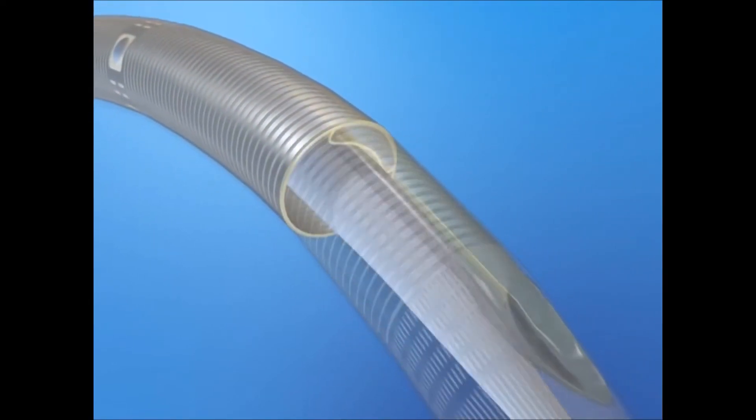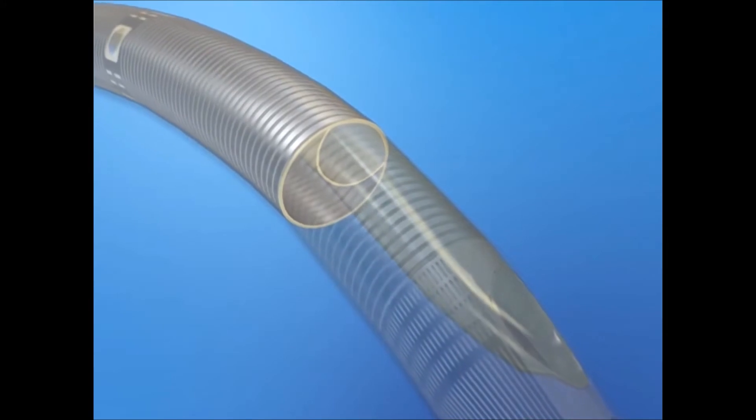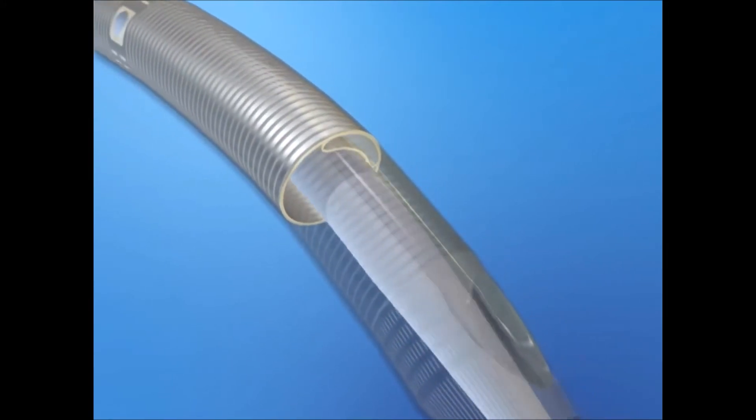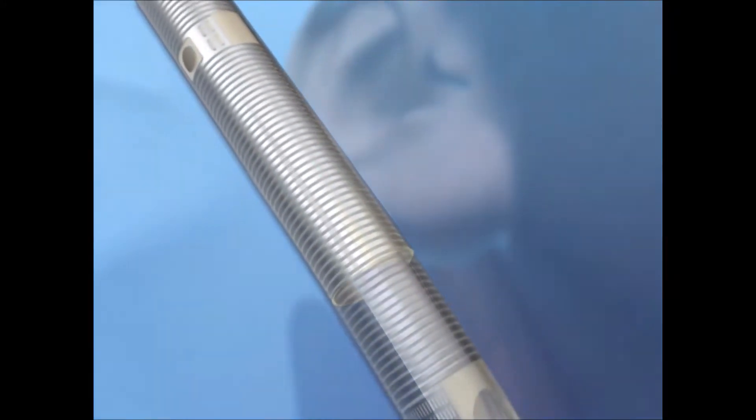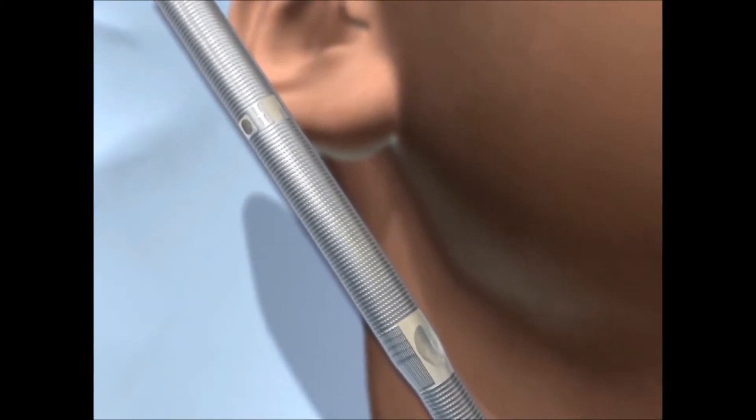Its patented dual-lumen design incorporates a deflectible, non-distending membrane to support continuous removal and return of blood from a single insertion site.